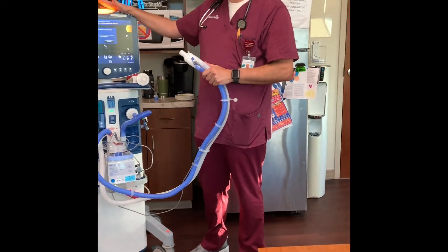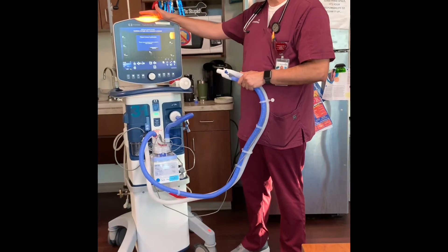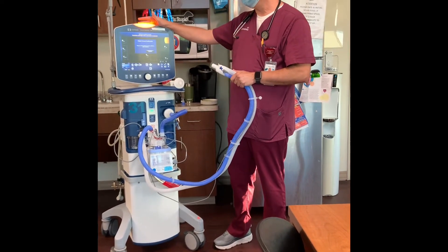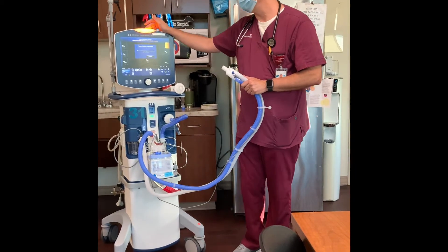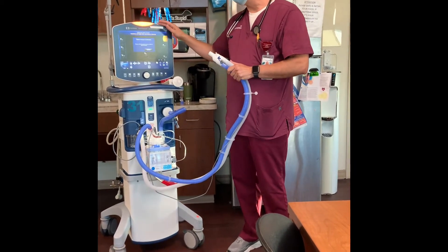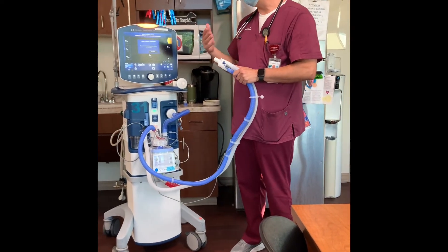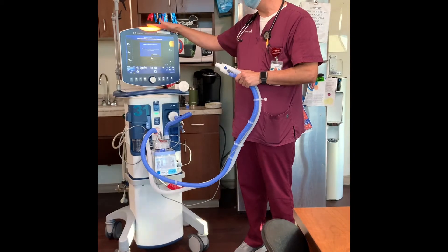There are two main modes that you'll see on this unit. You'll see the assist control mode, and then the pressure support, or weaning, mode. In assist control mode, every single breath that the patient is getting is a ventilator-generated breath.